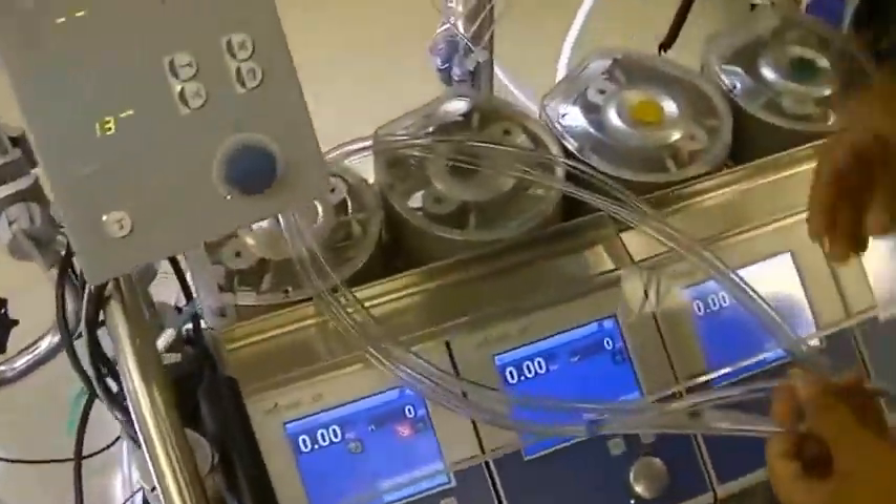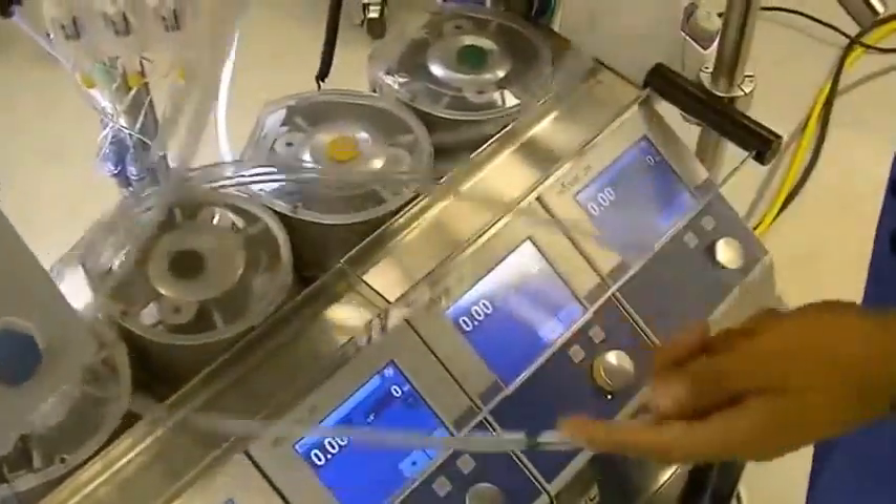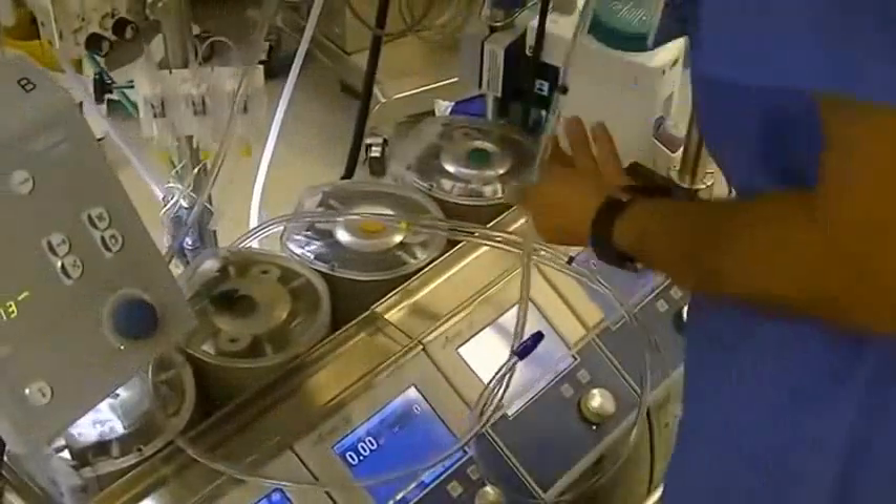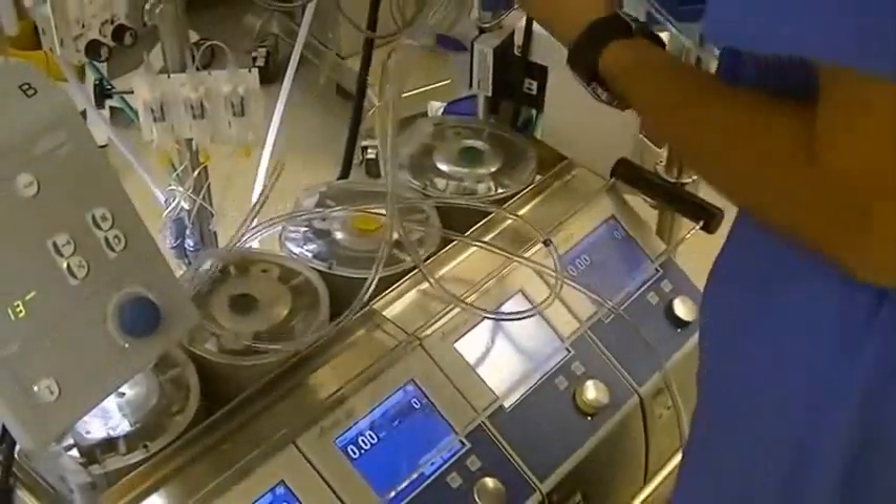You will probably start with the one that is older in the corner — the green. That is usually often used as a pump sucker, and I will probably set that one up first to try to just have it be a little neater.